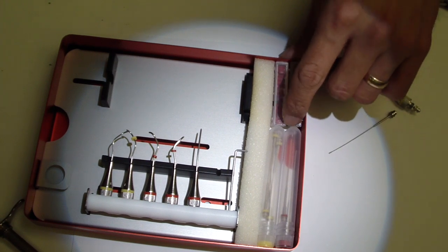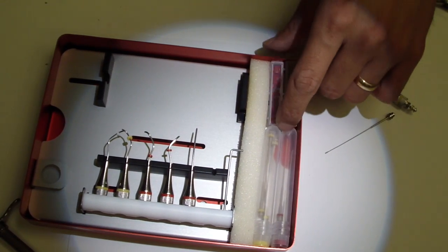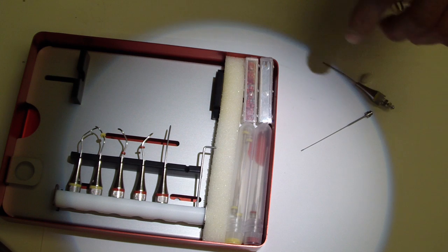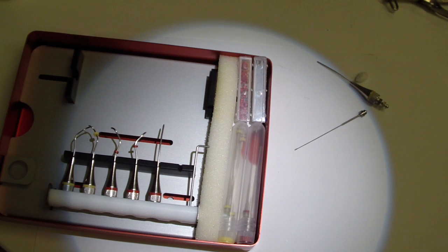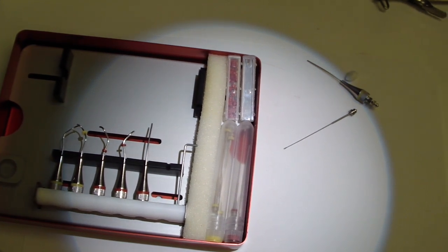There are some little stoppers, like for endofiles, to place on the end of the system. I haven't quite figured out why you would do that. If you know, place it in the comments, because I read the instructions and I still don't understand it.